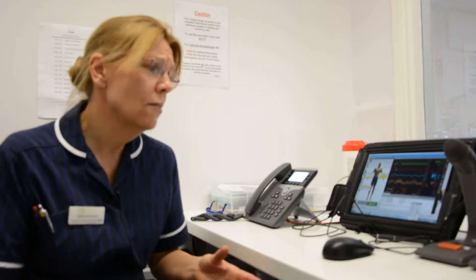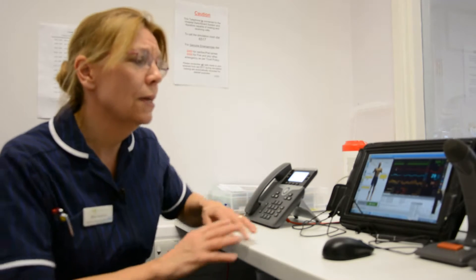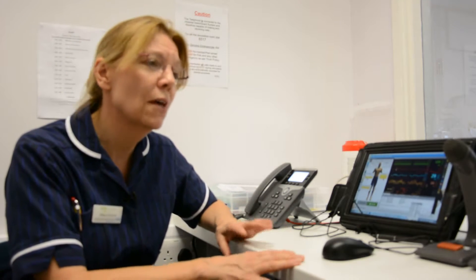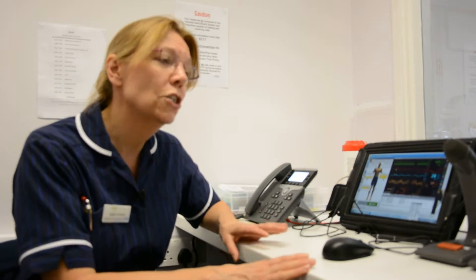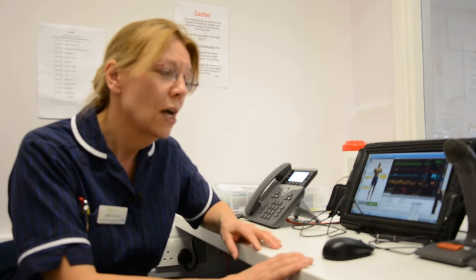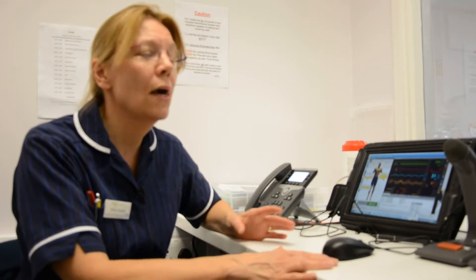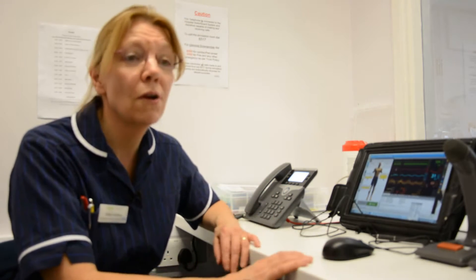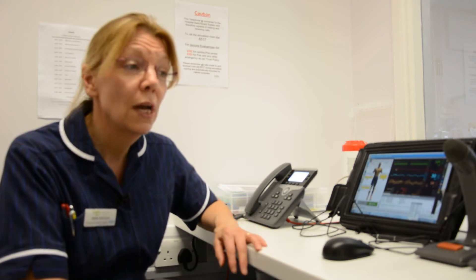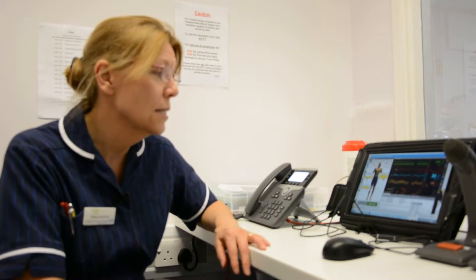Here in the control room I'm able to manipulate any aspect of the mannequin and the environment to help the scenario run smoothly, just like it would in normal clinical practice.